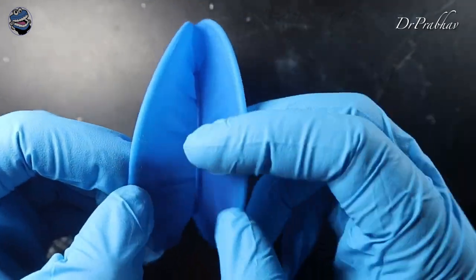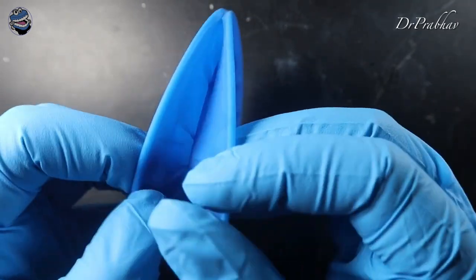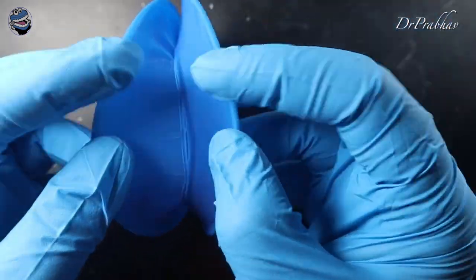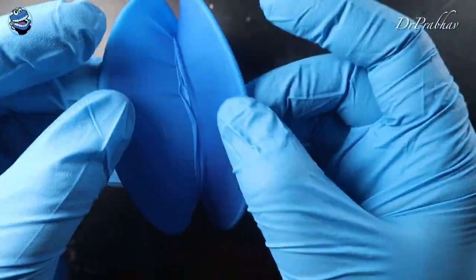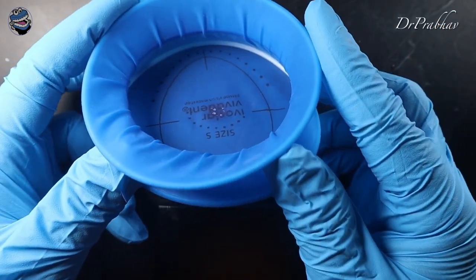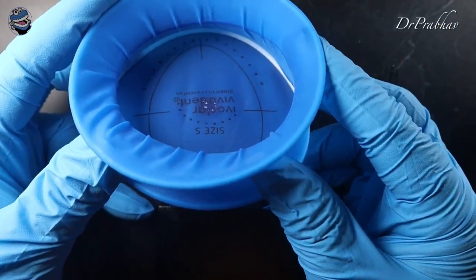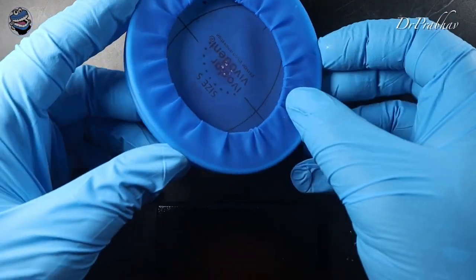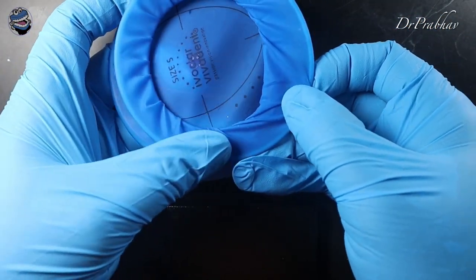It has an inner frame for itself. There are two rings as we can see: the outer and the inner ring. The inner ring will be placed in the buccal vestibule, both lower and upper, and the outer ring will be placed covering the lips. It has some markings resembling the template which we use for marking the tooth number in the rubber dam.